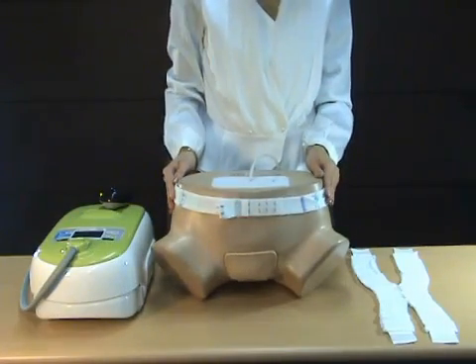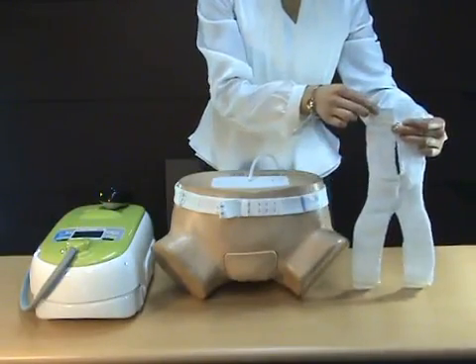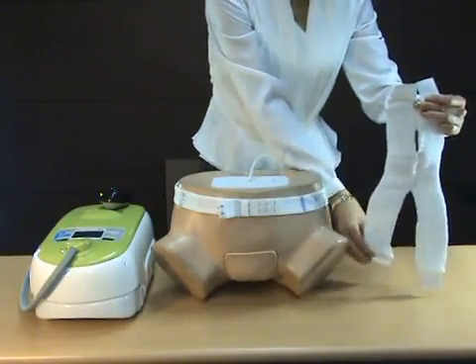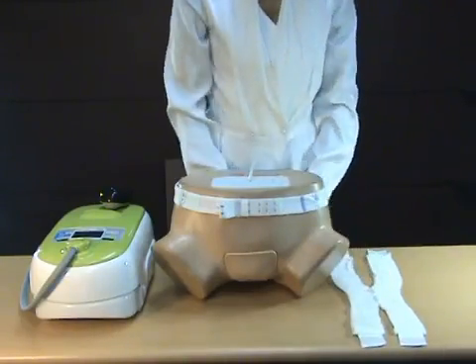With the elastic strips, the short side goes to the front and the long side to the back, divided by the sewing points.